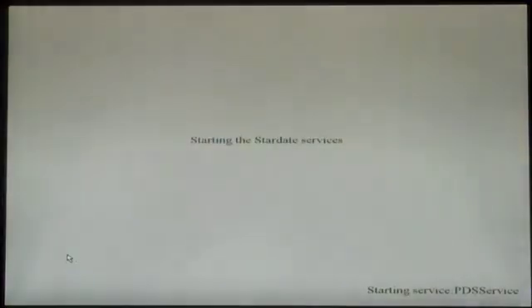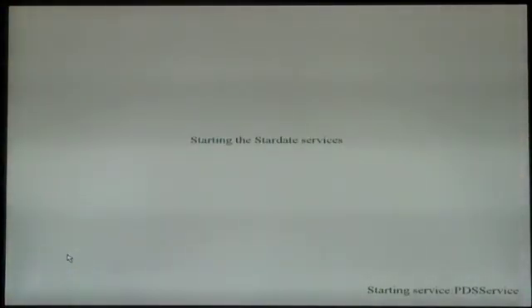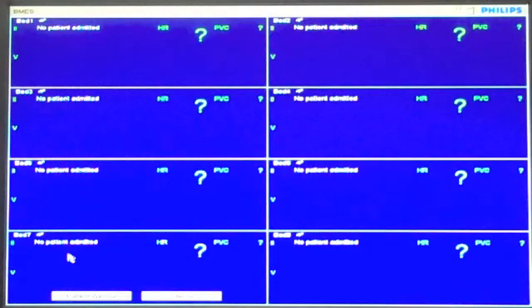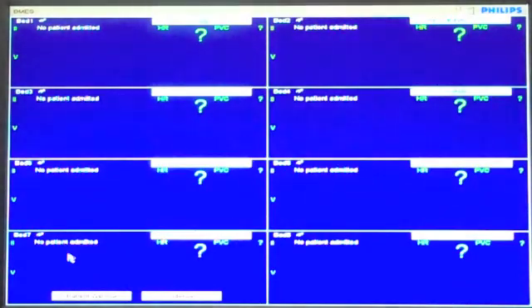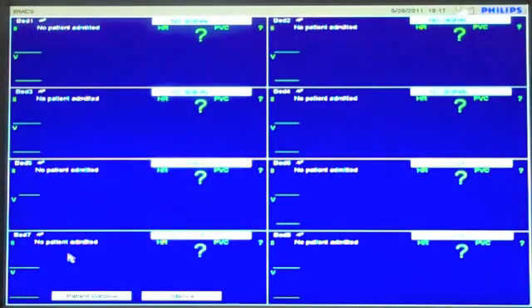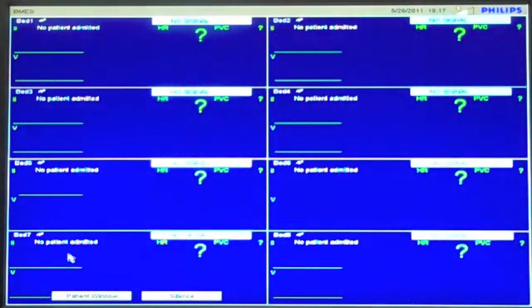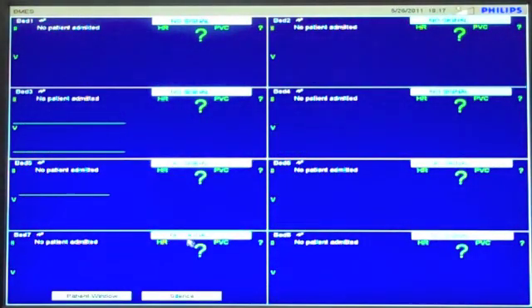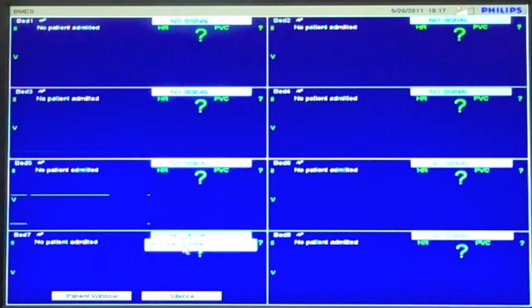Your system is now configured for use. Click Return to Monitoring in the lower left-hand corner. Once the system returns to monitoring mode, verify that all sectors read no signal.